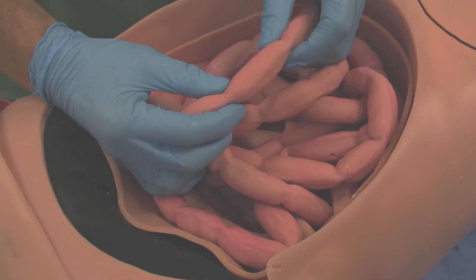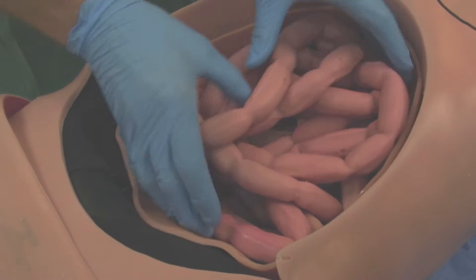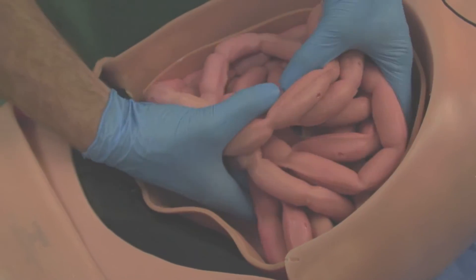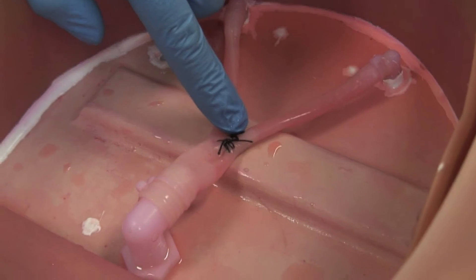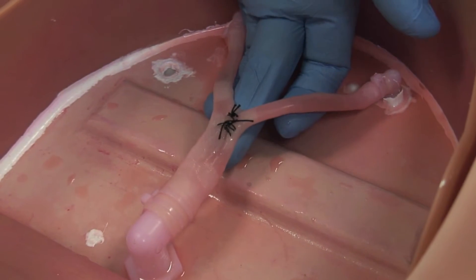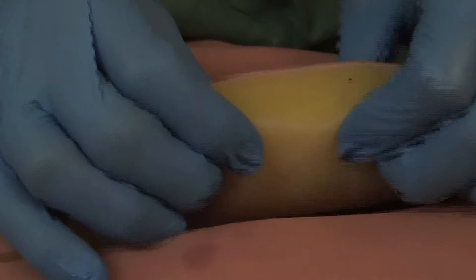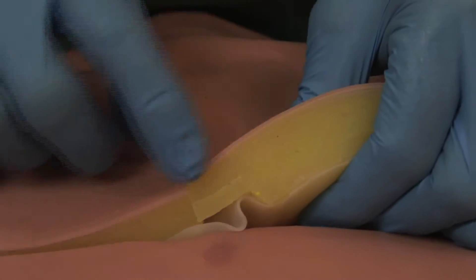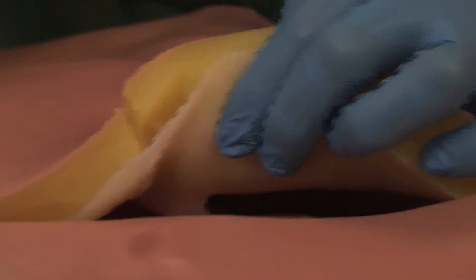More on the Abdomen Platform in a bit, but first I want to specifically point out that one of the many benefits to working with Simulab is the quality and cost effectiveness of their skin program. Purchasing a product like TraumaMan is affordable as future skin packages can be acquired as needed. As for quality, here we can clearly see the layers of epidermis, subcutaneous fat, and the peritoneum.